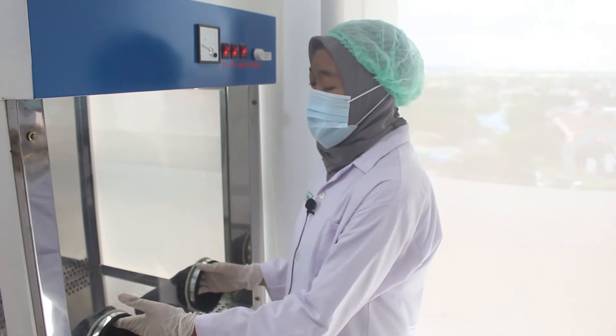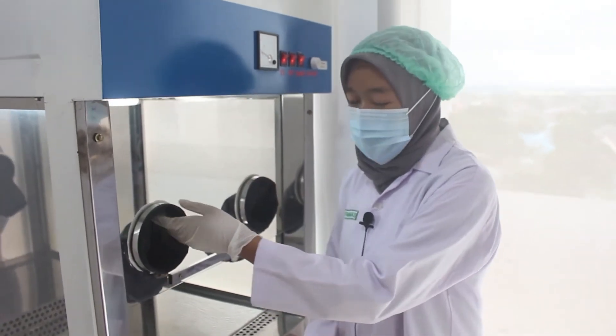After 30 minutes, open the door and put the supplies inside.